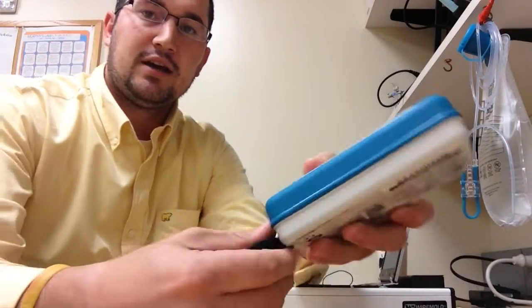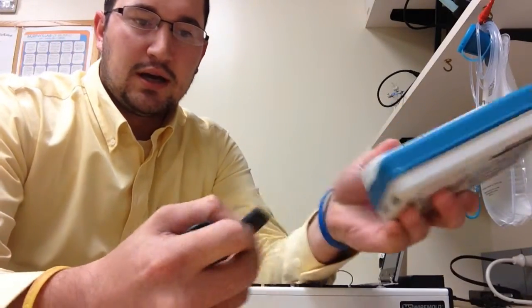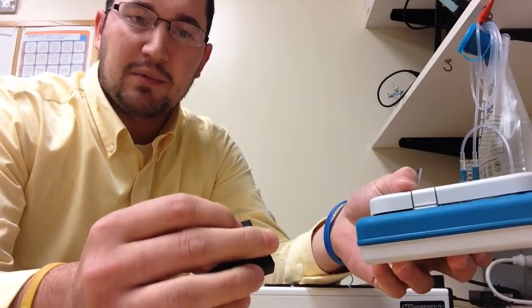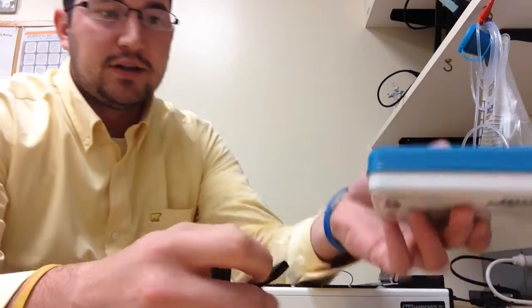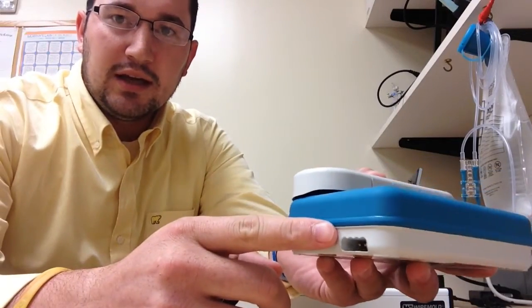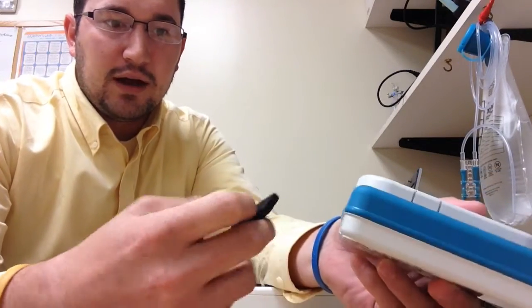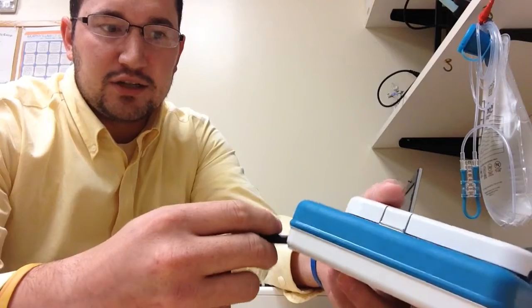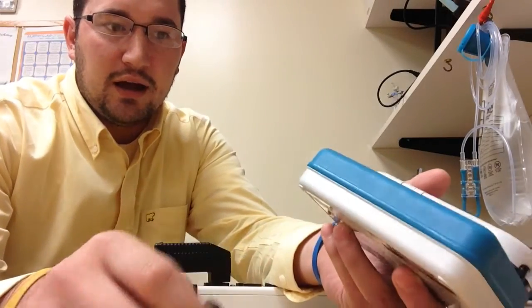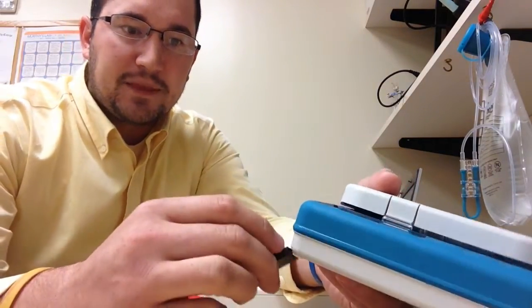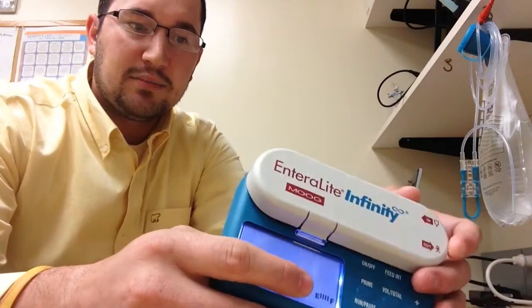You also would like to check the prongs, which seems to be a common problem. The prongs here on the AC adapter that plug into the pump itself come loose very easily, so it's always good to check to make sure that the prongs fit snugly, firmly into the pump.